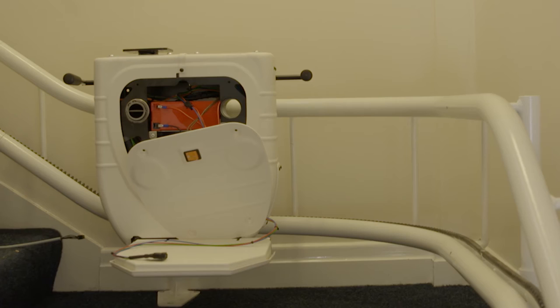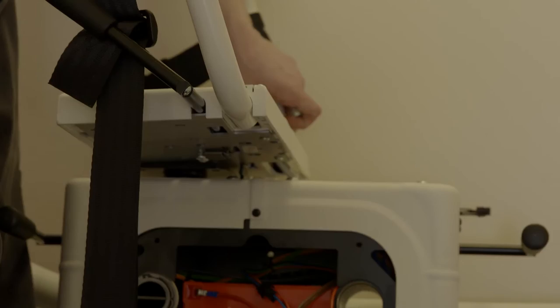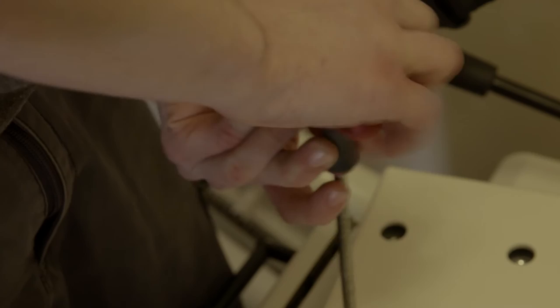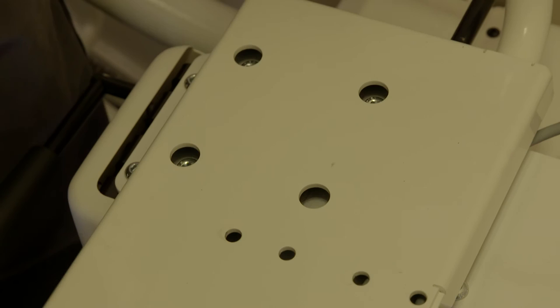The next step is to start connecting the individual sections of the carriage. First, fasten the armrest to the unit using four M8 by 12 cap head screws. Apply Loctite to each thread to ensure a secure fix.